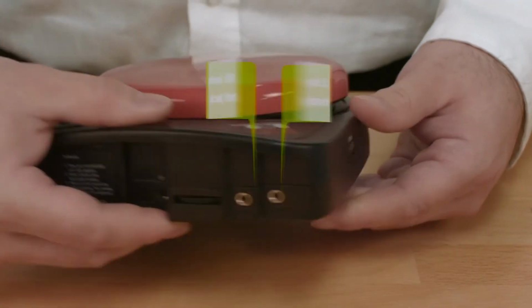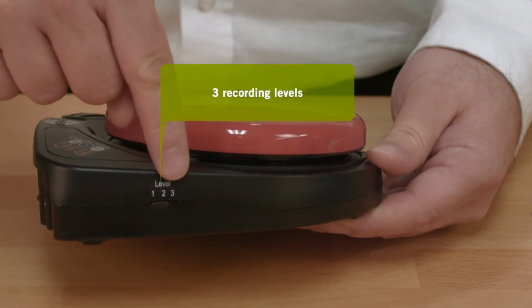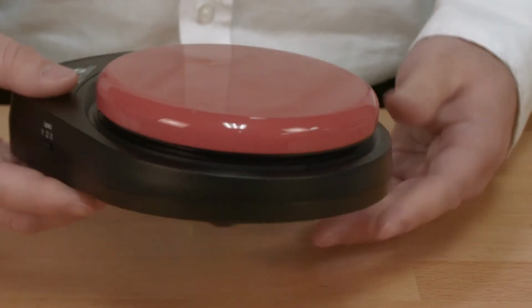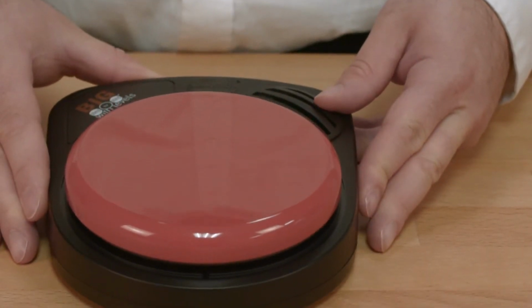Lastly, both devices feature 3 recording levels. These levels enable you to record 3 separate sets of messages with a total record time of 4 minutes to the device and then use them as they are needed throughout the day.